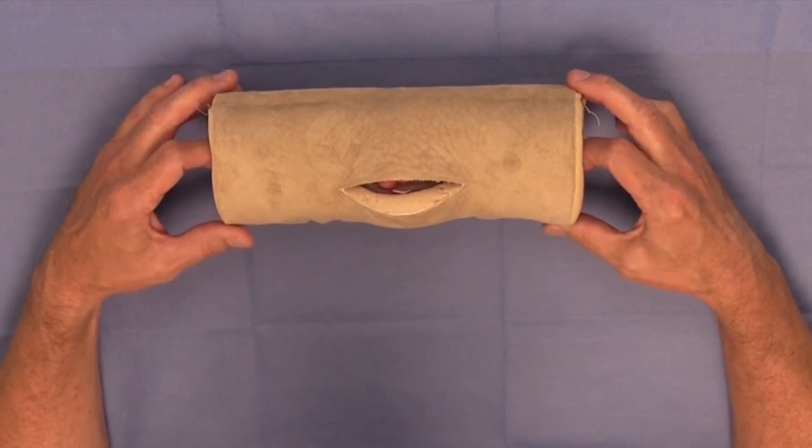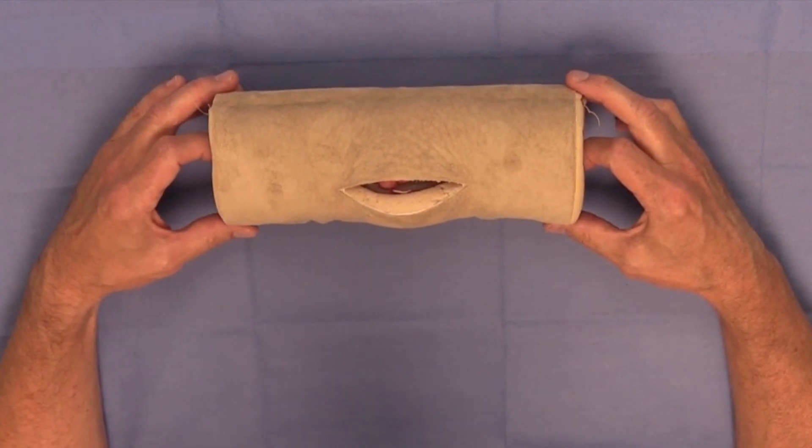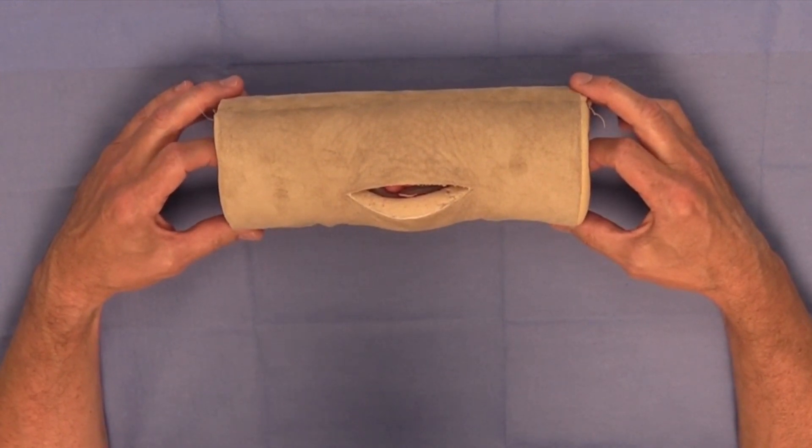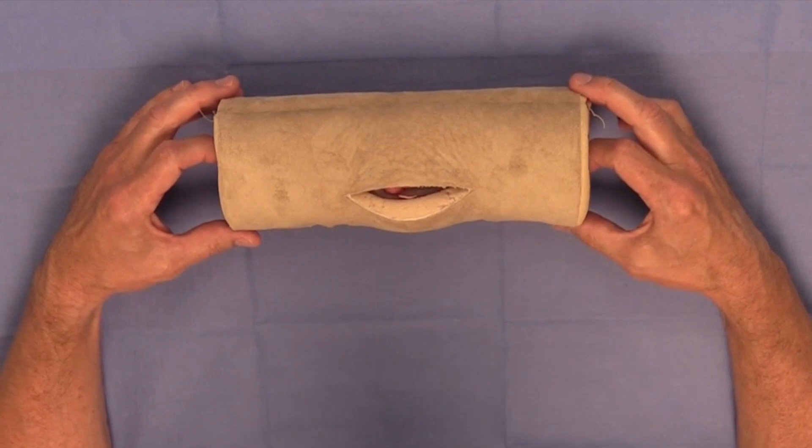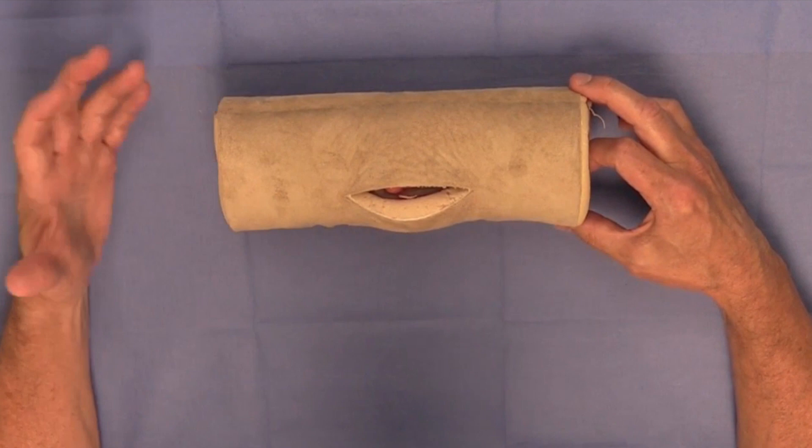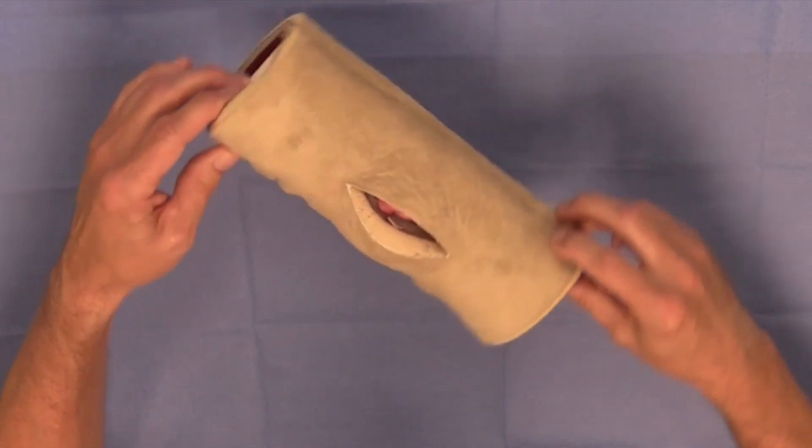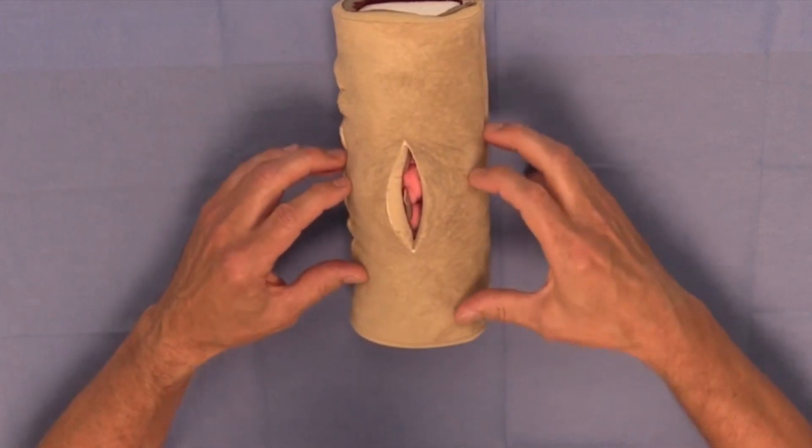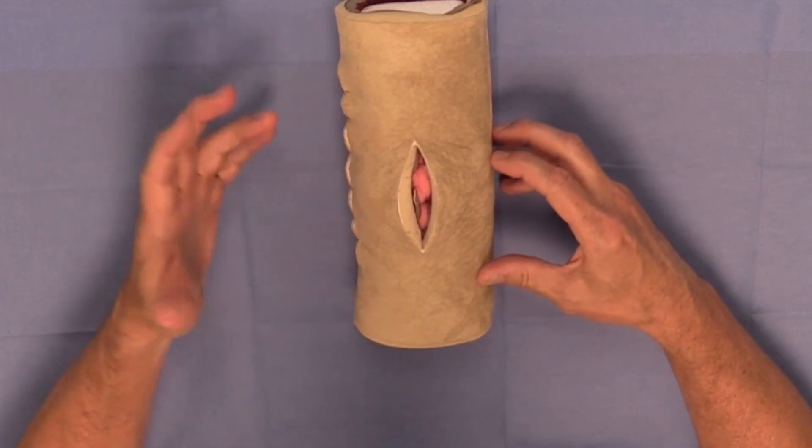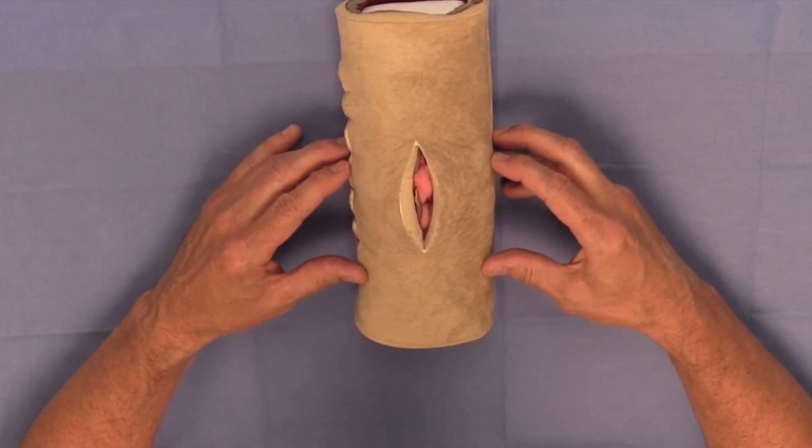Now it turns out that there is a practical examination in this course, and I can't dictate exactly how the DAISY will be oriented, and so you really should be familiar with and practice your suturing techniques with the DAISY in this orientation and in this orientation, simply to get well versed and versatile in your surgical techniques and in your practice sessions.